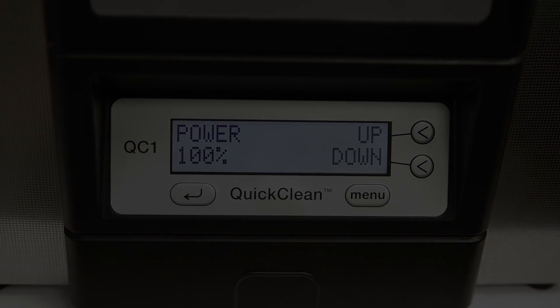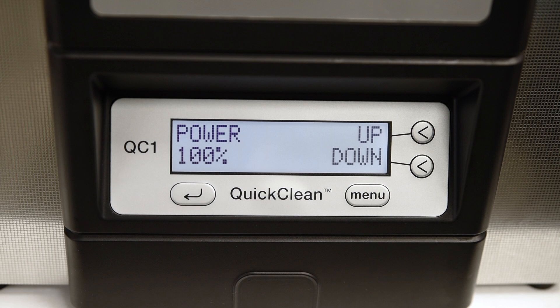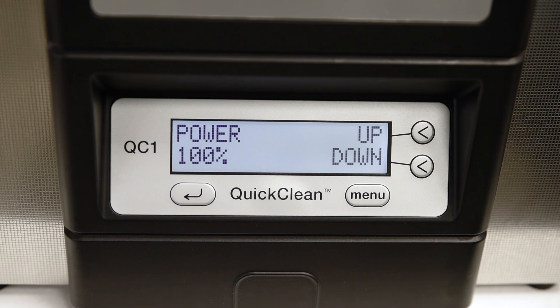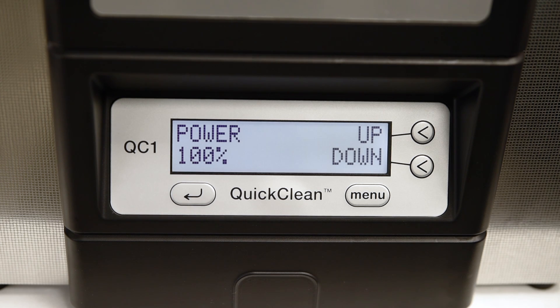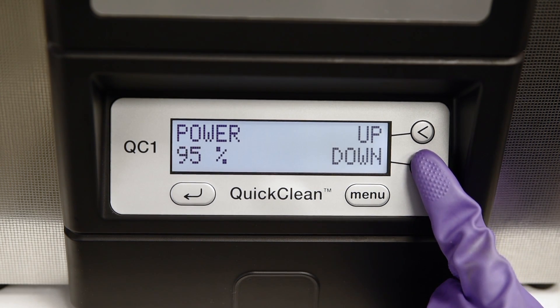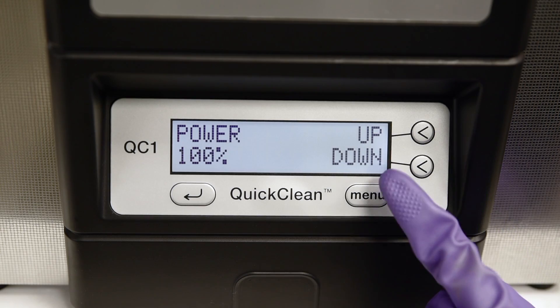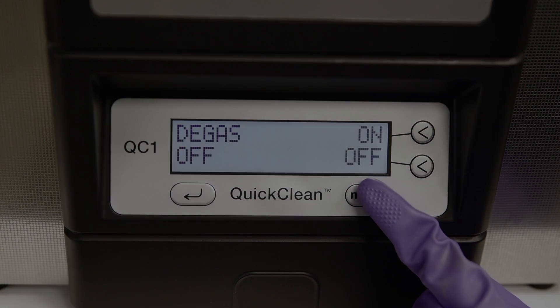Next is setting the power level. Your ultrasonic comes with the ability to adjust the level of ultrasonic activity. This allows you to tailor the ultrasonic activity to the specific cleaning application. Your ultrasonic is factory set with a power level of 100%. Use the up-down keys to adjust the power level between 70 to 100%. When you've reached the desired power level, use the menu key to move to the next screen.